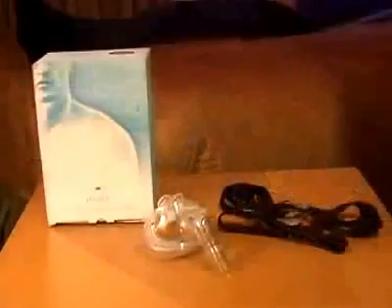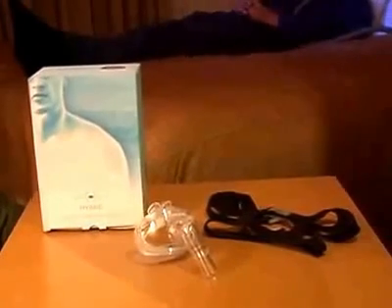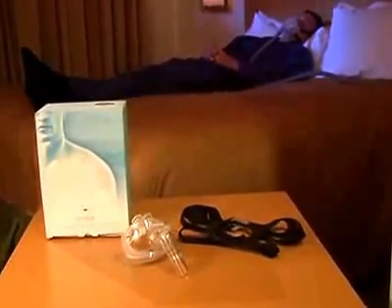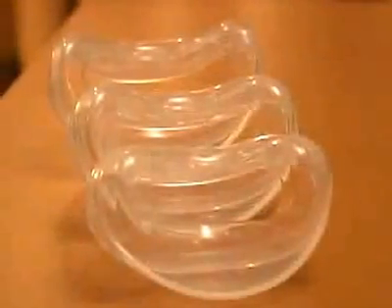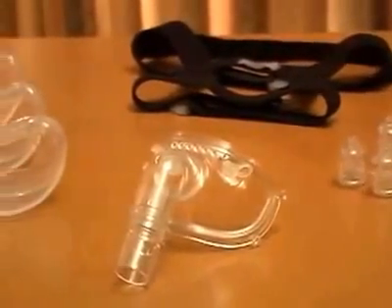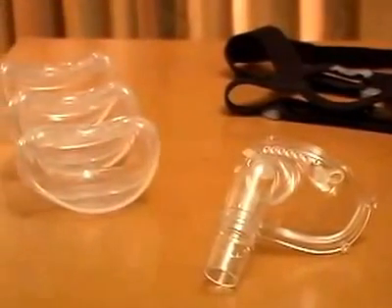All of these features and benefits of this unique and innovative device are intended to bring you a new level of relief during the treatment of respiratory insufficiencies and obstructive sleep apnea. The Hybrid Universal Interface is packaged with three sizes of nasal pillows and three sizes of oral cushions. All pillow sizes fit all cushion sizes, giving you a minimum of nine sizing options to obtain your optimal fit.